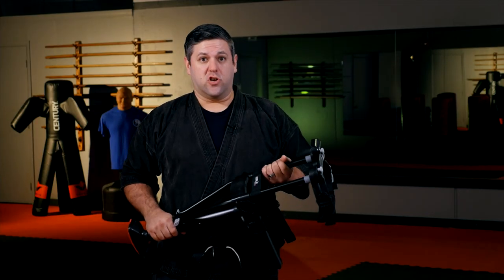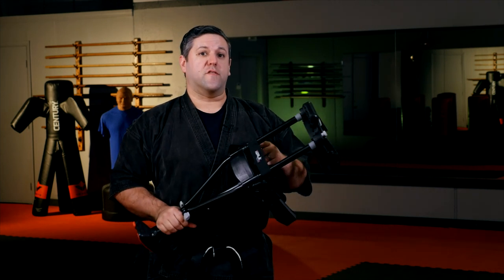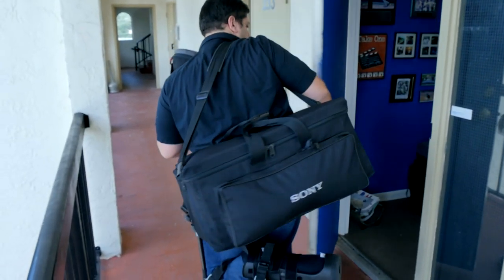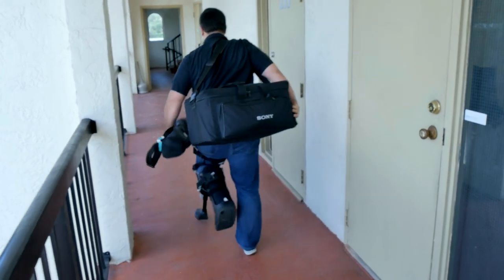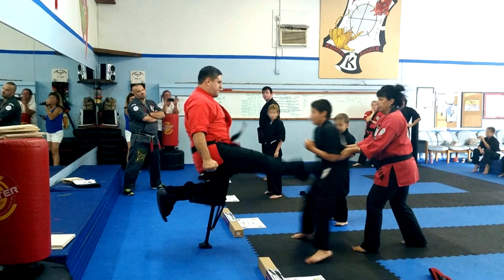It was a total game changer. I had the surgery, came home, and I was using it that night. If you know you've got surgery coming up, get it built and get used to it ahead of time, because the day of, you're not going to feel like putting it together. I still had to take it easy and be careful, but this made all the difference in my day-to-day activity. I could use stairs, go on video shoots, carry gear up and down stairs, run the camera — everything I could do before, I was pretty much able to do on this, even teach classes. It even got to the point where I was able to throw kicks with it during kids' graduation ceremonies.